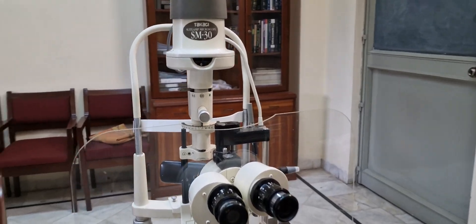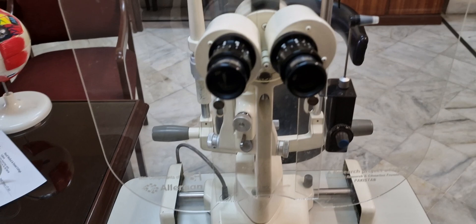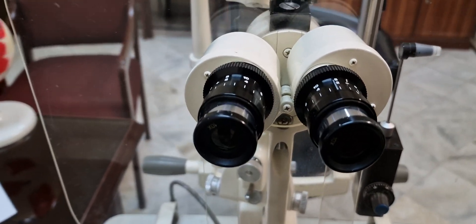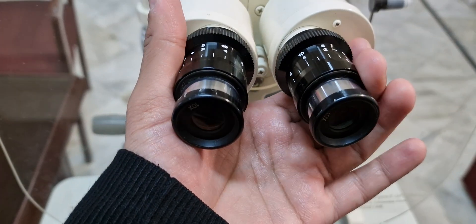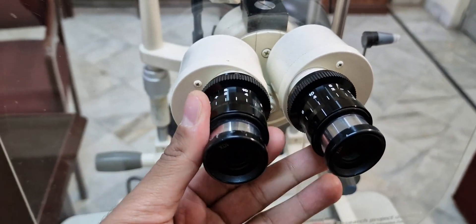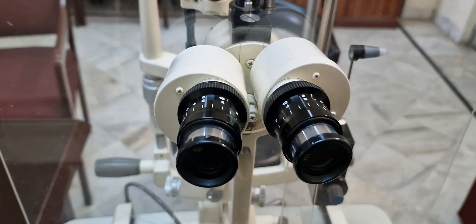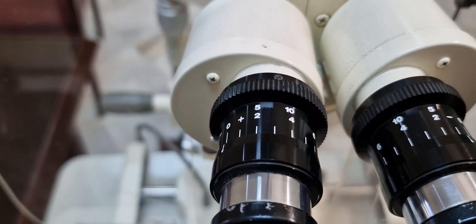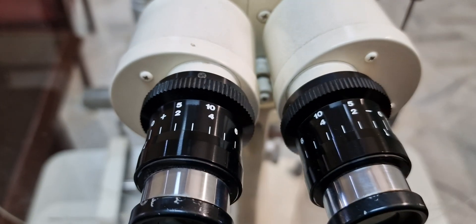Hello friends, my name is Dr. Faslanwar. Today we will discuss the parts of the slit lamp. First of all, we will see these are oculars. They can be moved inwards and outwards so we can adjust the IPD, and we can see through them a single image. There are markings present here.